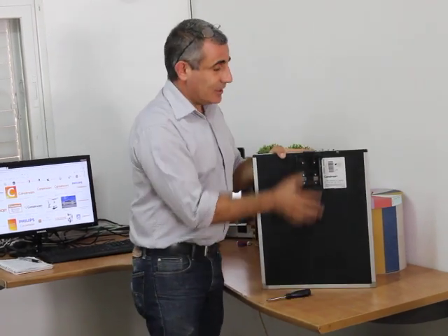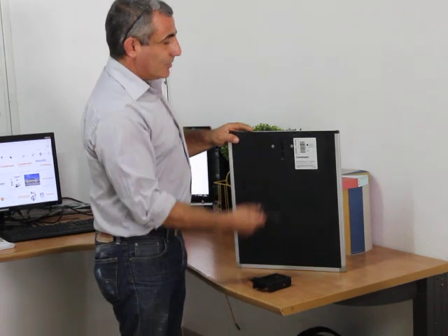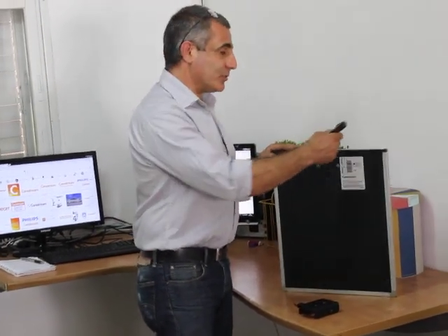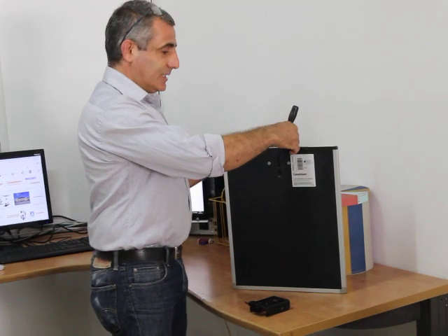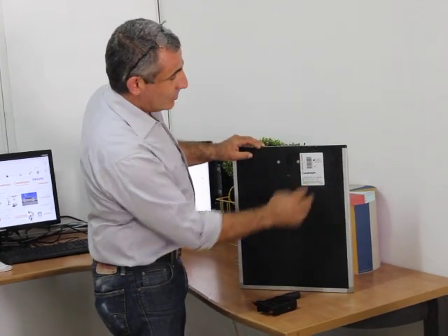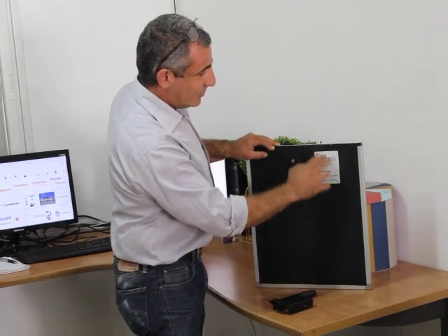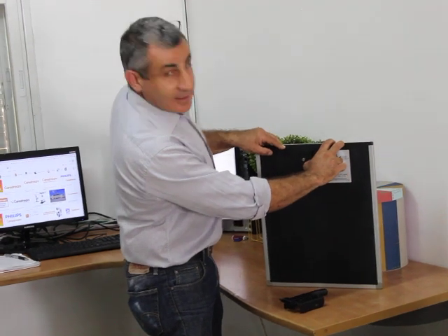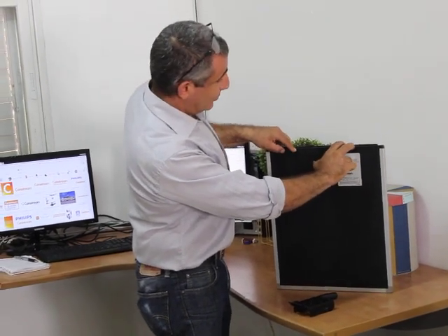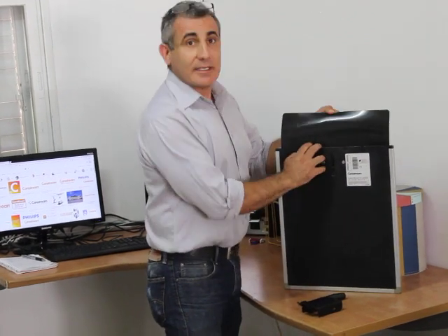Another way, if you don't have this special tool, you can take a flat screwdriver and push the shutter here in the center, or by placing your fingers here and push it down. Push the shutter down and then you take the gripper up which grips the screen and take it out.